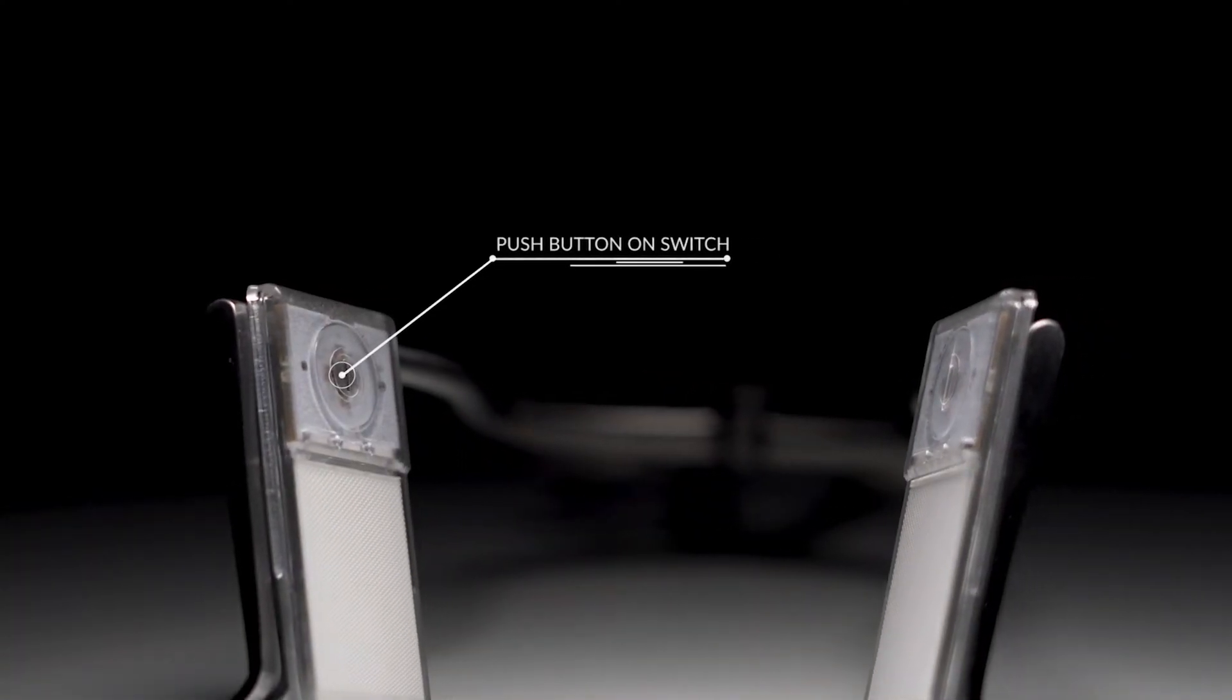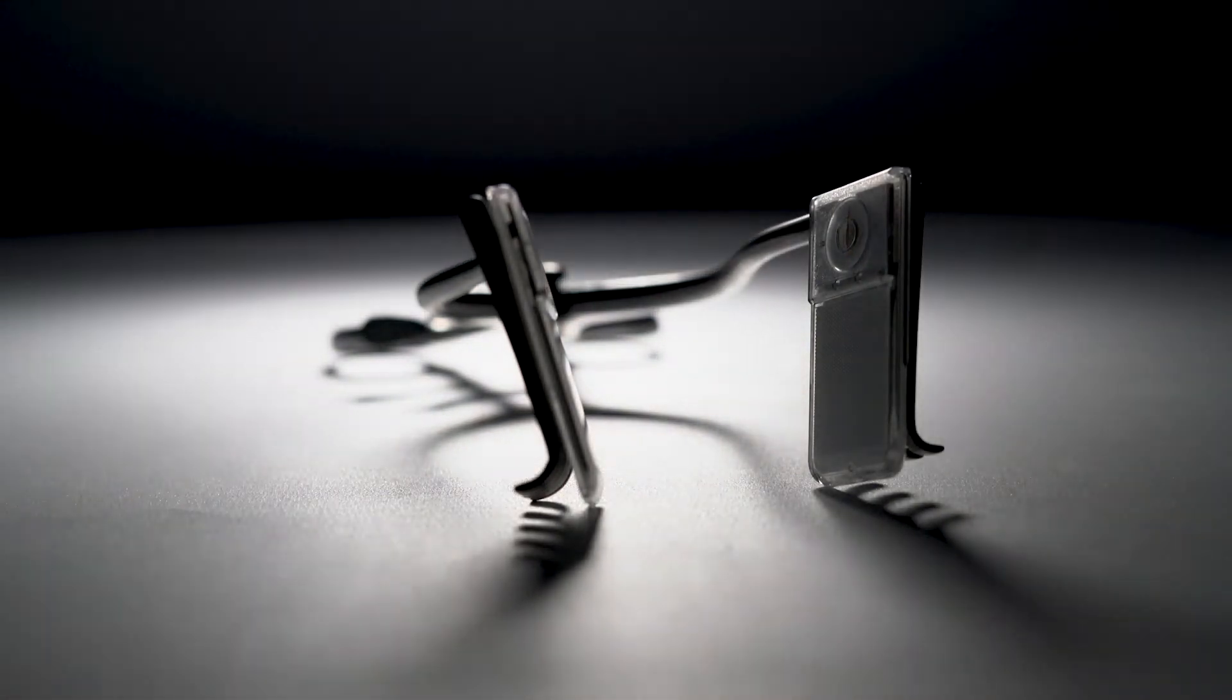Click the button and you're good to go. It truly is as simple as stick it and click it.